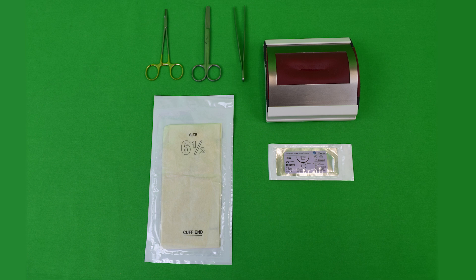In contrast, traumatic needles are separate from their thread. The needle's eyelet must be threaded before use. This eyelet and thread create a double perforation of the tissue when the needle is driven through, creating a stronger reaction. Traumatic needles should only be used on more robust tissue, such as muscle or fascia.